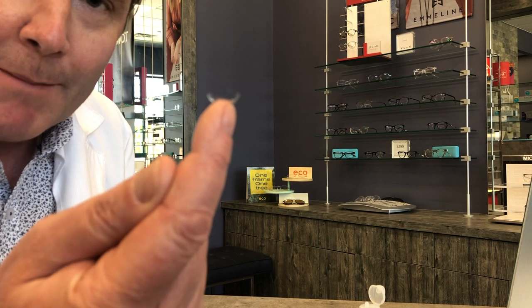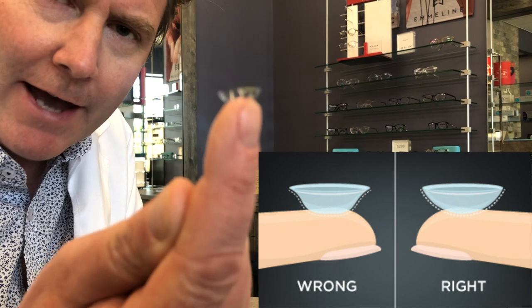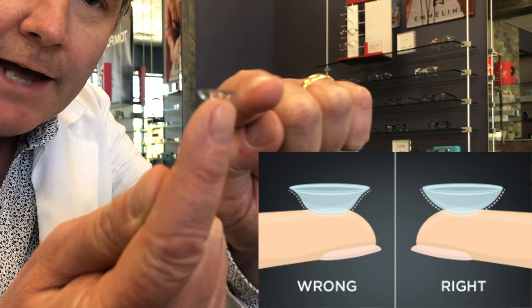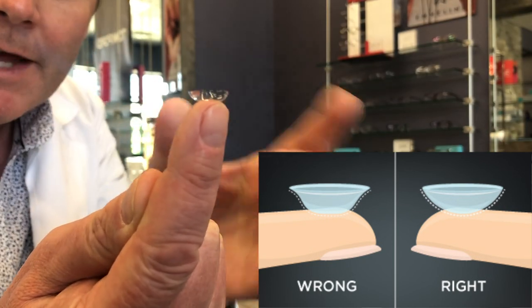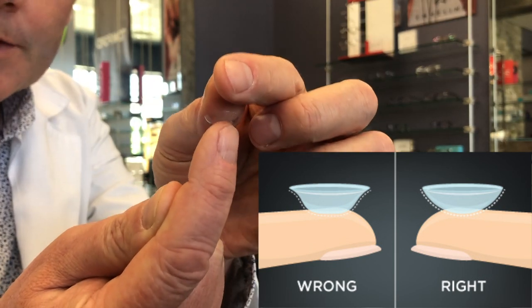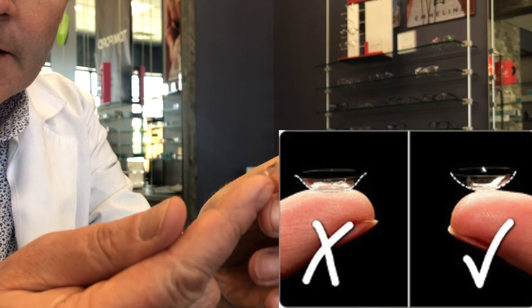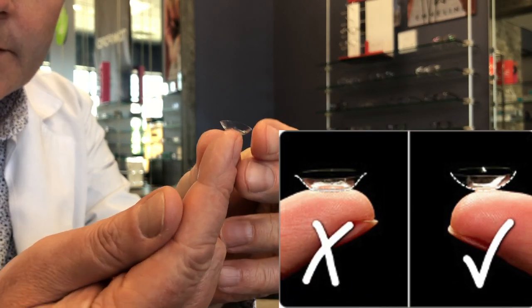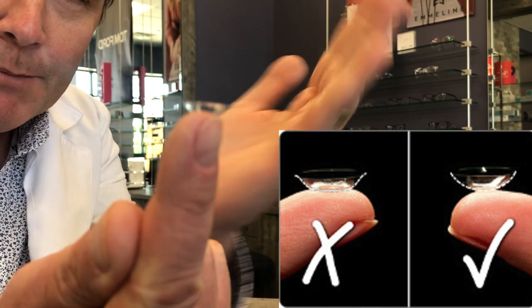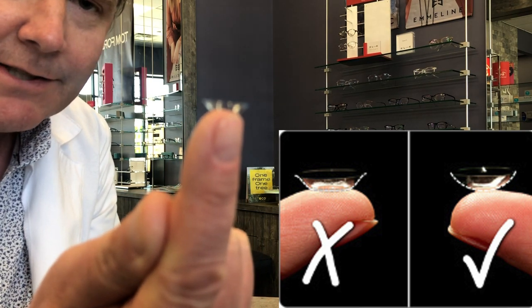Remember that there's a right side and an inside-out to a contact lens. When you look at the edges sitting up on your finger, look at the very tips — if it curls up like a bowl, that's the correct way. If you put the lens inside out, the edges rather than going up like a bowl will flare out to a certain extent — that's inside out.